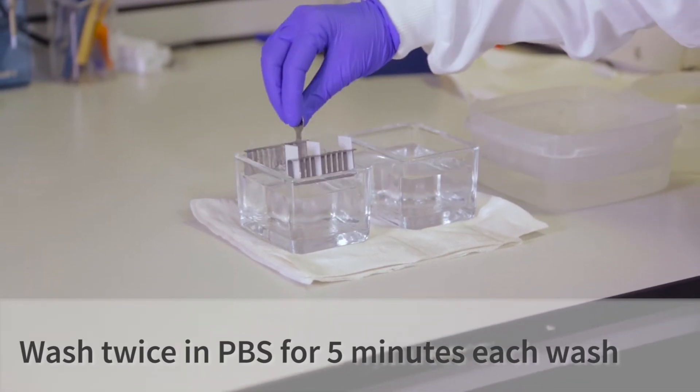After the third sodium citrate wash, the slides get washed again in PBS buffer twice for five minutes each.